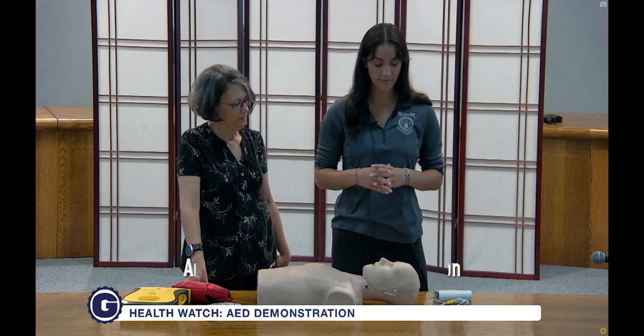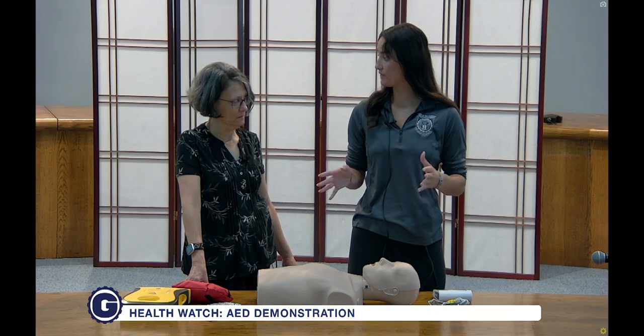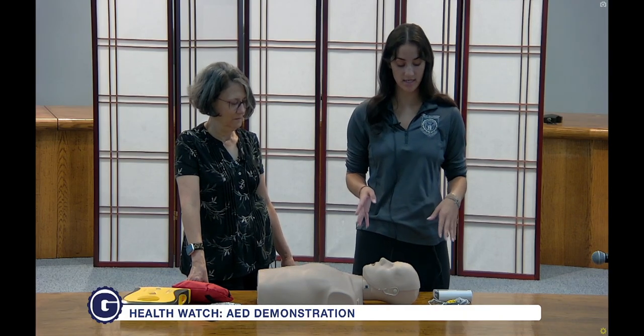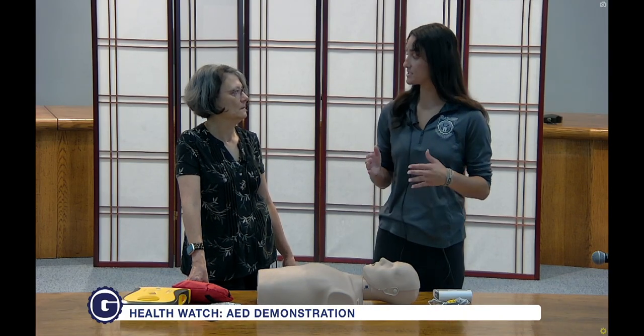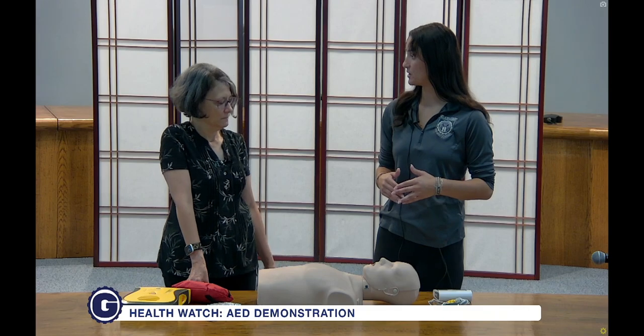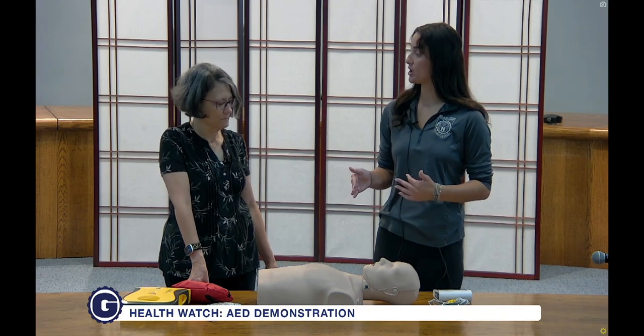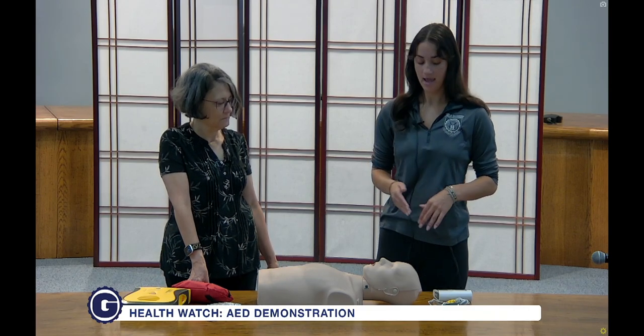So the first thing that you want to do when you are faced with an emergency is obviously call 911. You want to make sure that you have 911 on the phone with you throughout this entire process. And when it comes time to use the AED, you're simply going to turn it on and it's going to walk you through it.